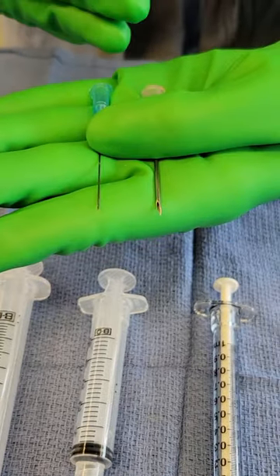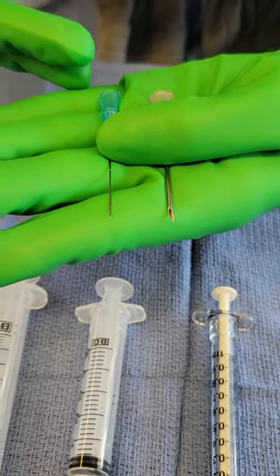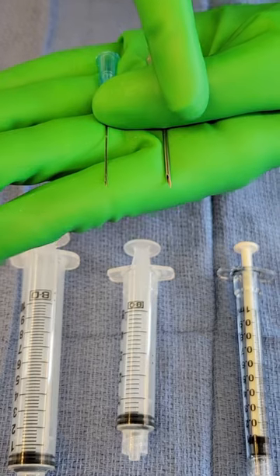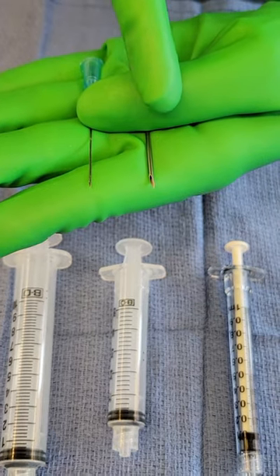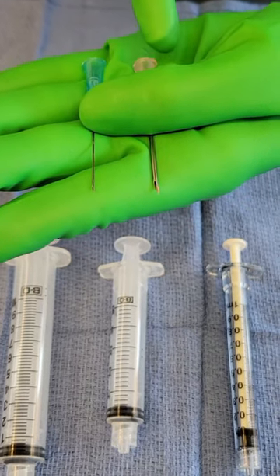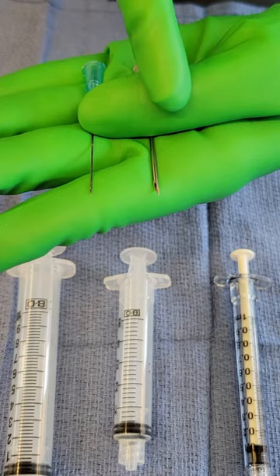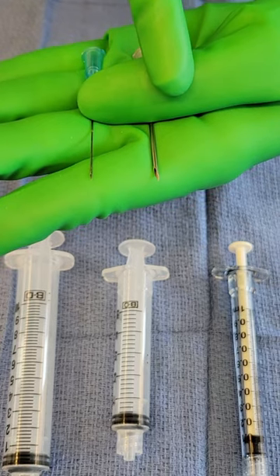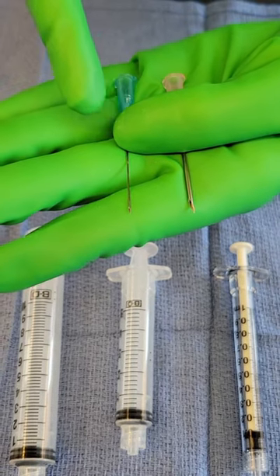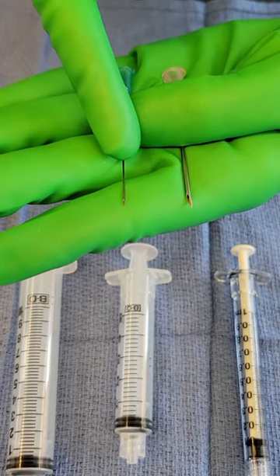When we are injecting, we want to be as delicate as possible. This 18-gauge is seldom an appropriate choice for injecting, whereas it's a good option for drawing up medication. In contrast, this 25-gauge would be appropriate to inject.